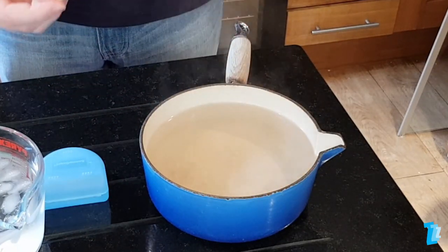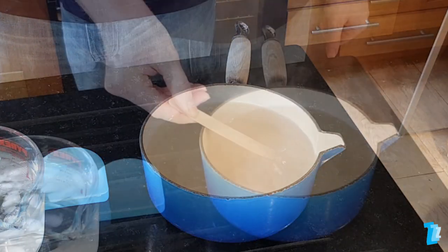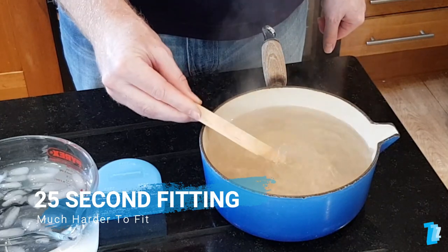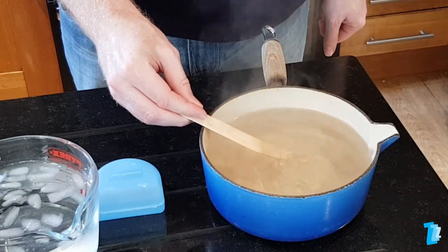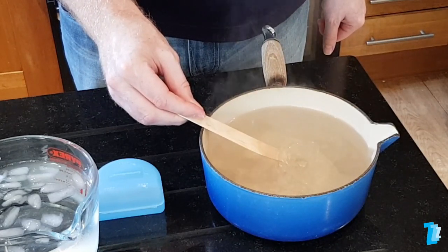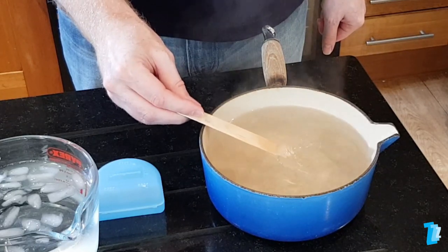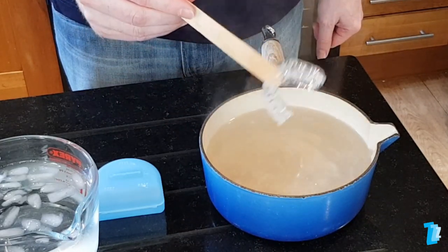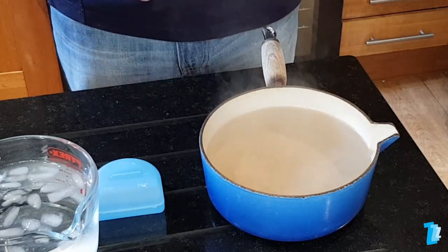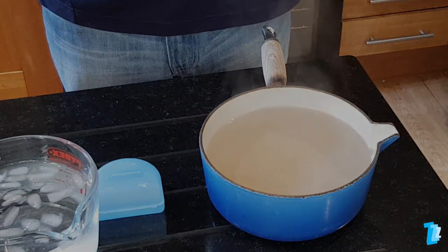The plastic will have relaxed, but not so much that it becomes floppy and uncontrollable. After 25 seconds, a good fitting is still possible, but the plastic will be very floppy and there is a strong possibility that without great care and a steady hand, the channel walls will collapse. Getting the timing right is extremely important. When timed correctly, the device will maintain its form and can be easily fitted. We don't recommend you attempt any timing in excess of 20 seconds.